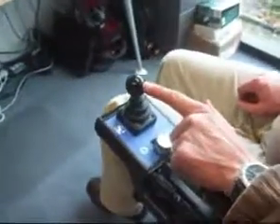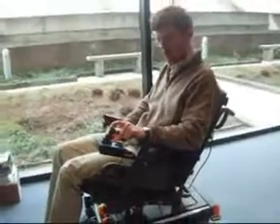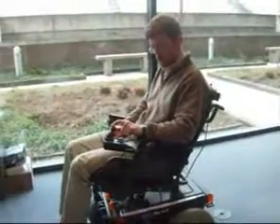Next, the chair actuators are selected on the joystick. The joystick now controls the selected actuator on the chair, which tilts the seat.